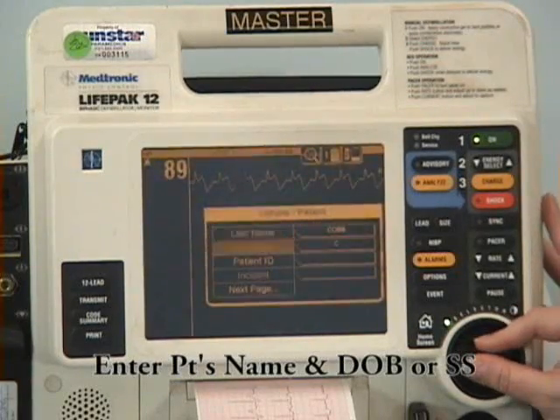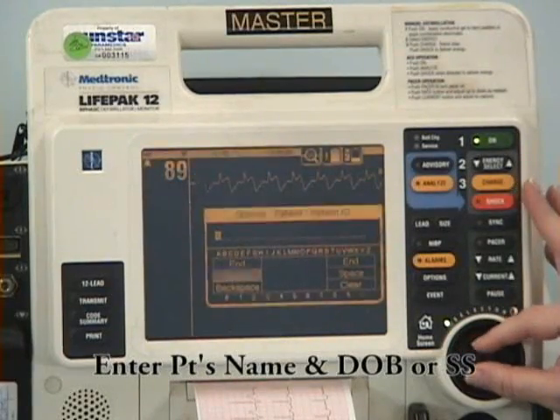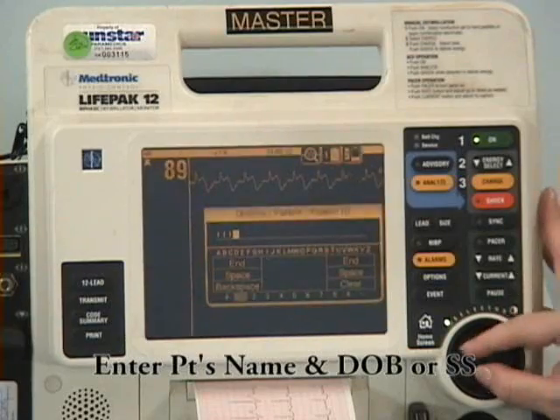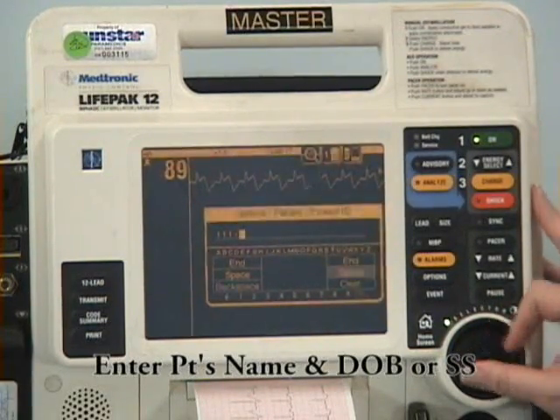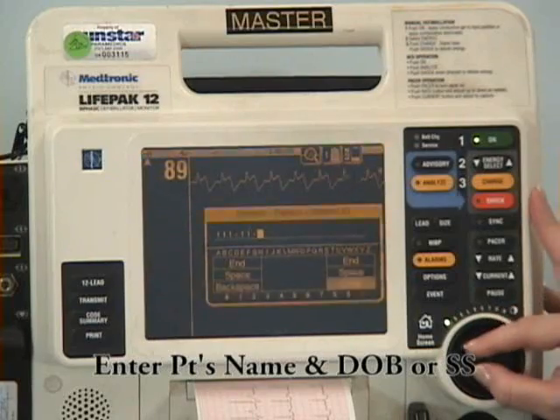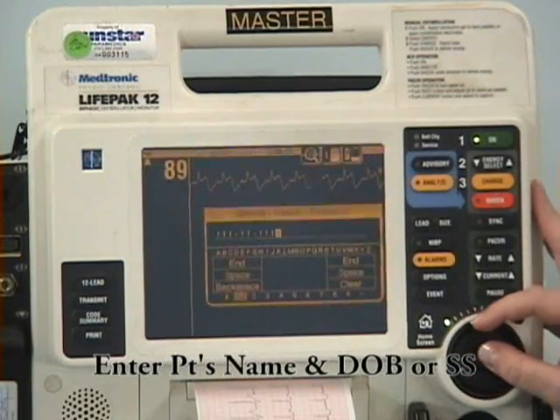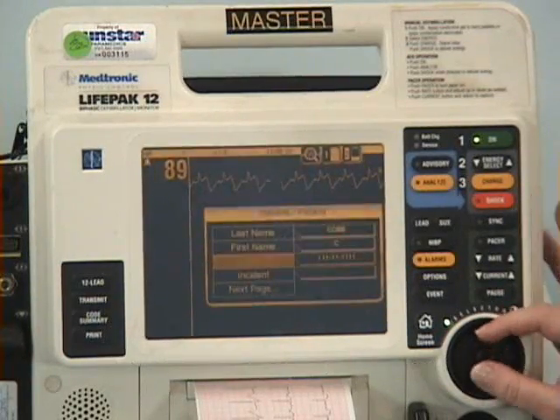Choose Patient ID and place either the patient's social security number or date of birth in. Remember to include the hyphens. Now you're ready to complete your 12 lead and transmit.